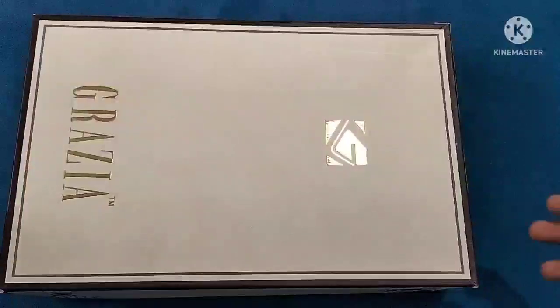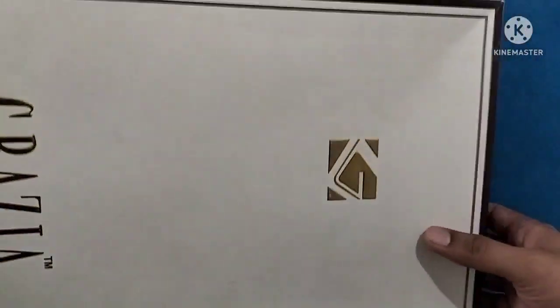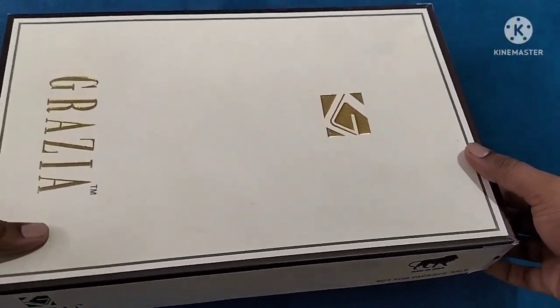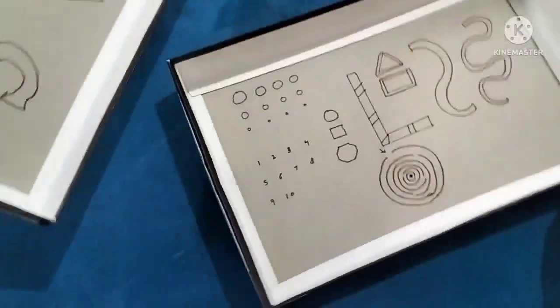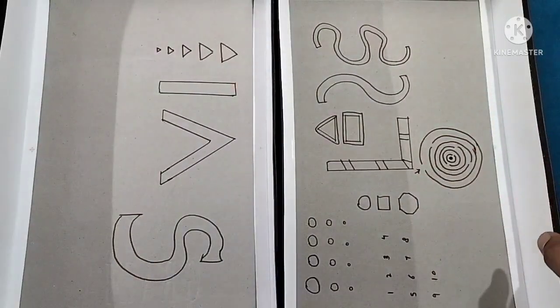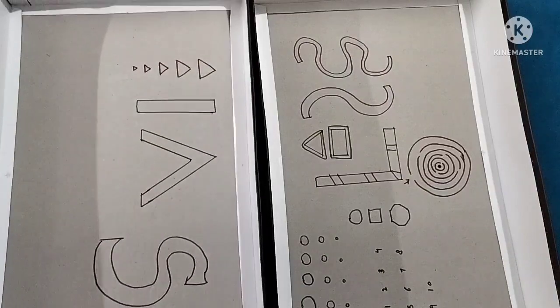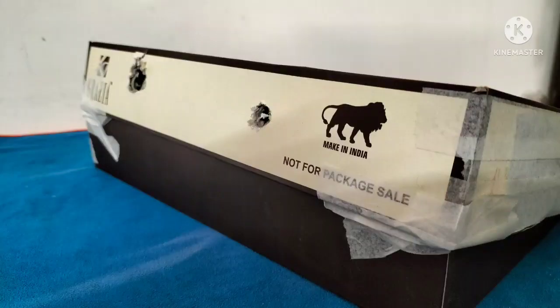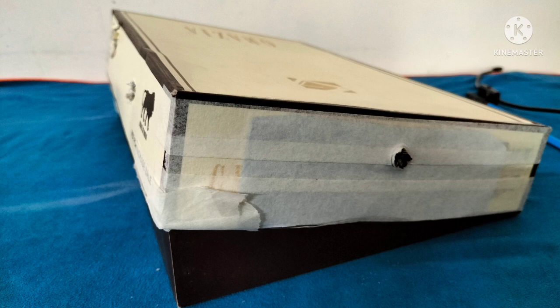The area of interest is a box or a chamber which provides us with a dark compartment where we would be doing the endoscopy. Here I have used a t-shirt box and inside it I made some geometrical figures. The box is closed and the portals are made. It is closed in a manner that at one end it is partially closed and at the other end it is completely closed. This provides a substantial amount of working space inside the chamber. An accessory portal may also be made.